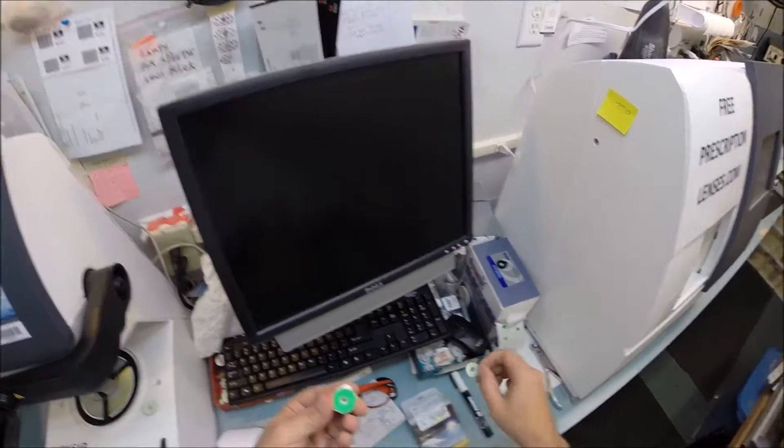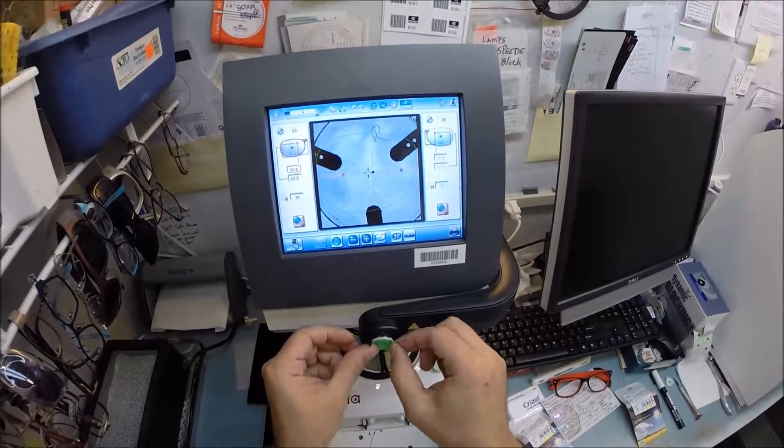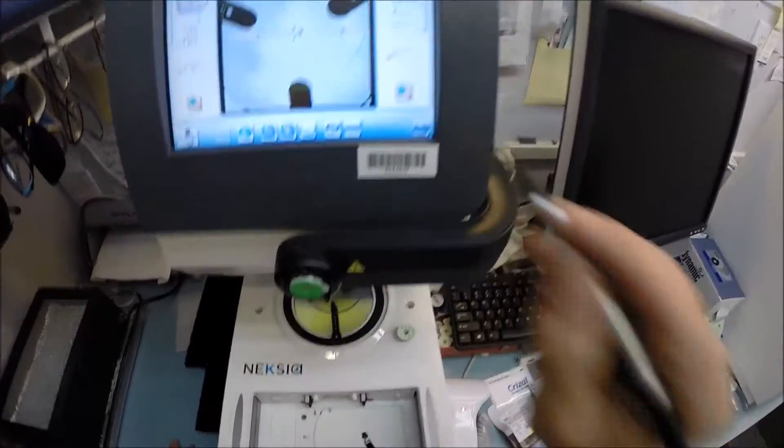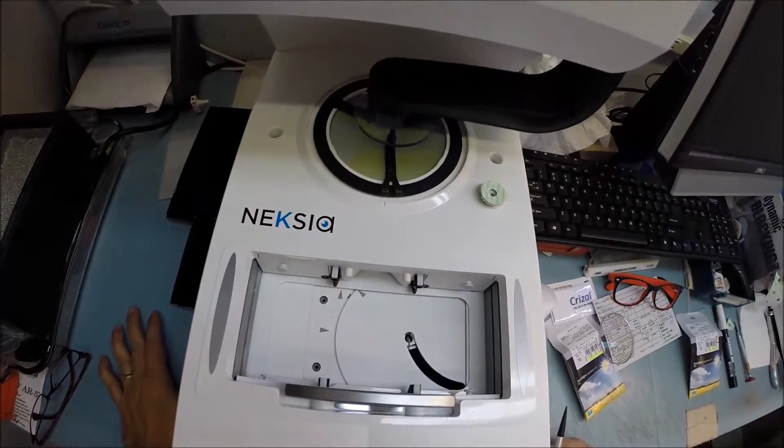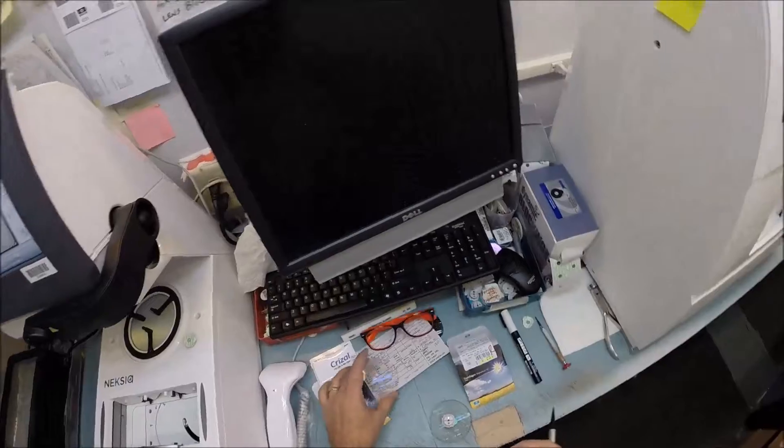I'm going to pull this piece of paper away to make my side green and sticky. This little silver button is a magnet that holds it in place in this arm. I'm going to hit this button and the arm's going to come down and place the block onto the lens.